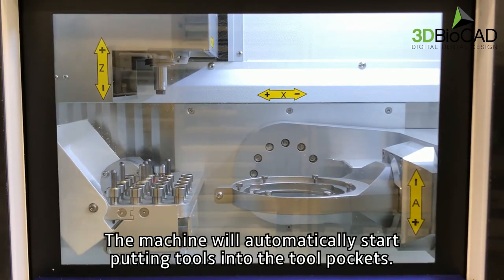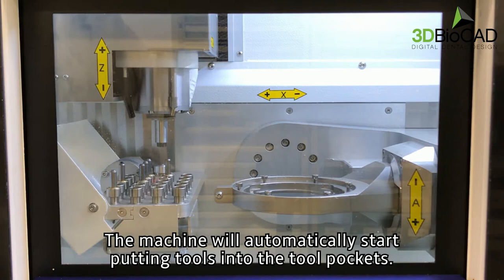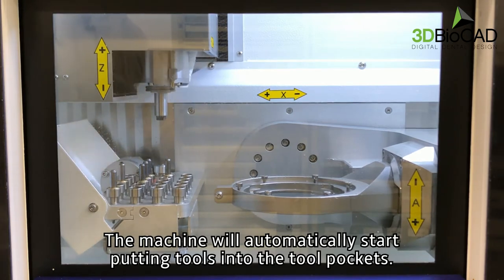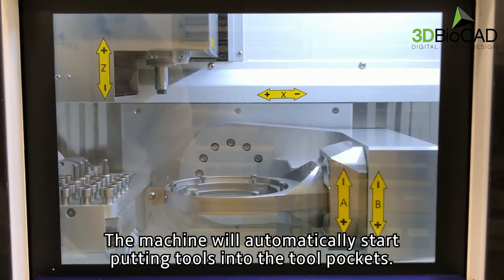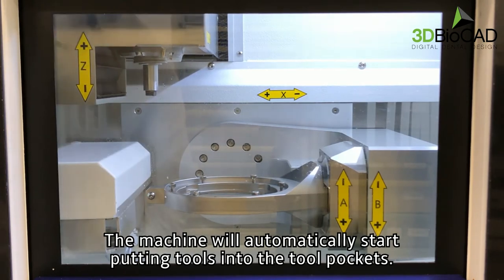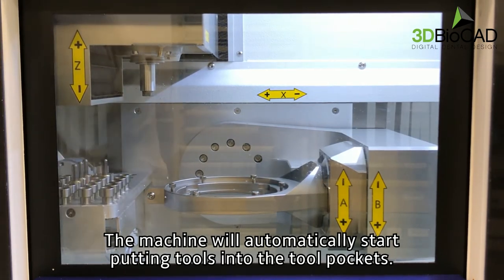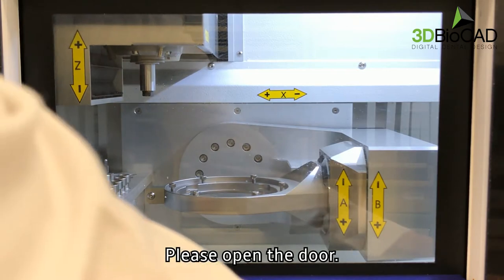The machine will automatically start putting tools into the tool pockets. Please open the door.